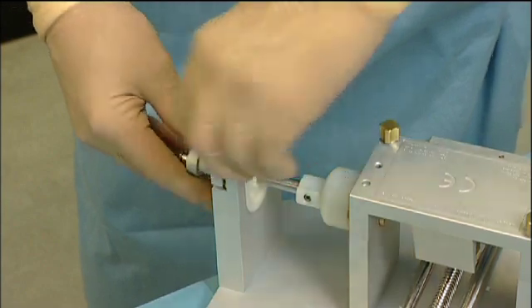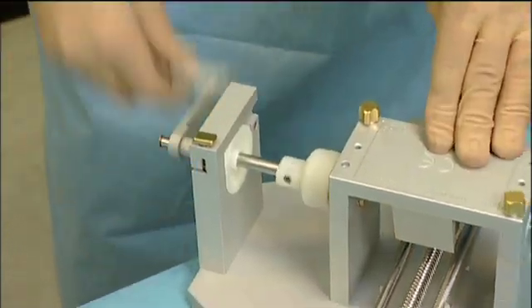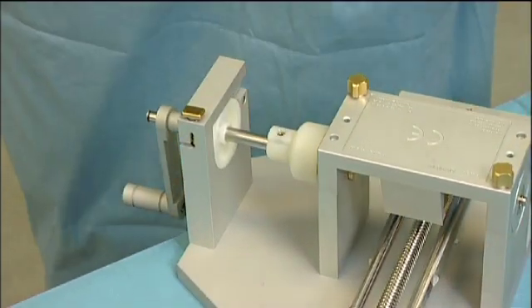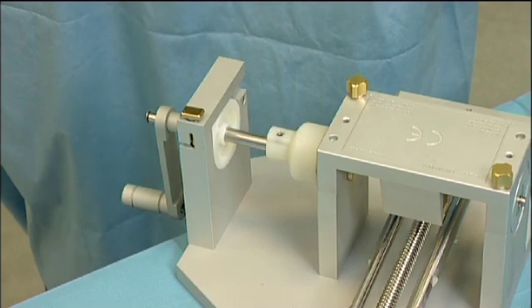During use, the hand drive is rotated clockwise at a constant speed, while a second person turns the hand wheel to move the cutting block.